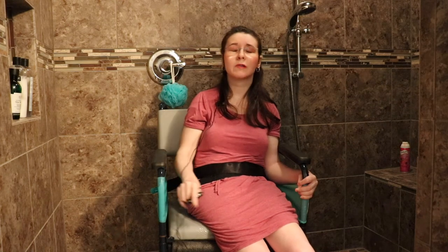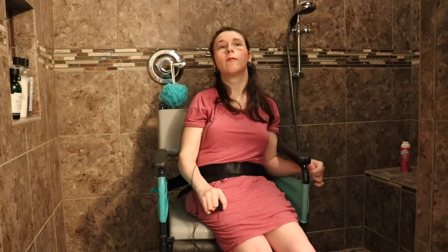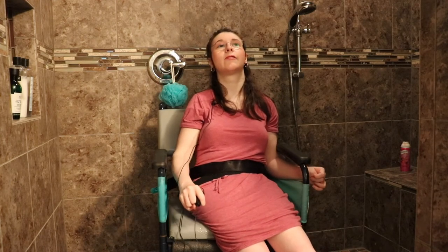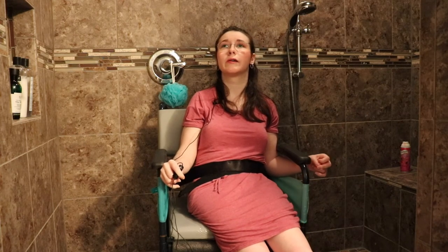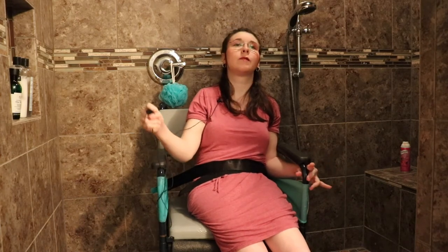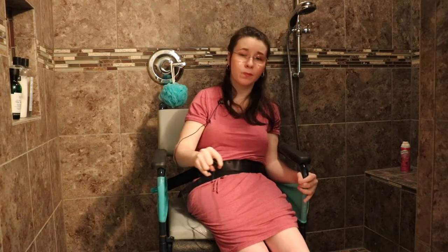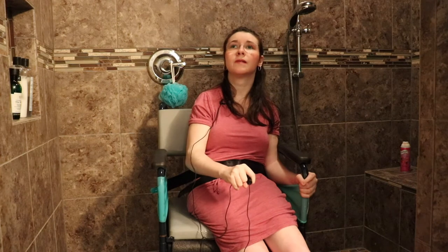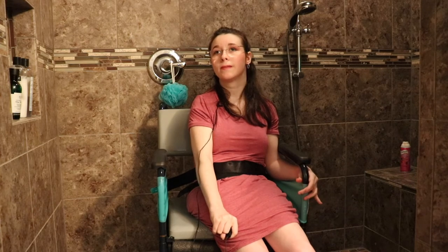So my mom was trying to keep my legs from doing what they usually do, but this one doesn't fix all the problems, so we're still trying to figure out how to modify it best. For stability, I'm not great on my own security — I have to loop my arm around here to be comfortable. Last time I was in the shower I used this instead of looping my arm so that it doesn't get hurt.